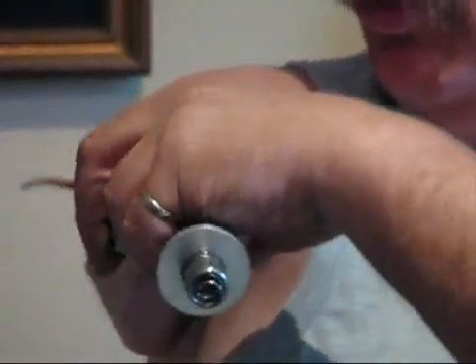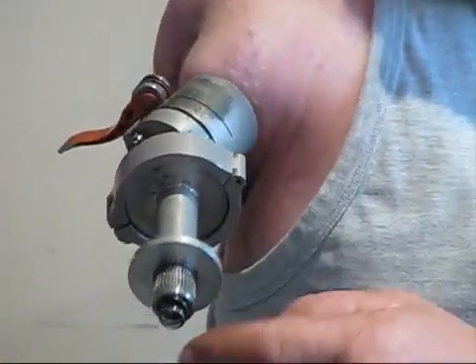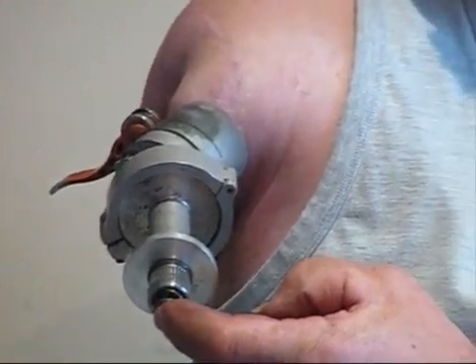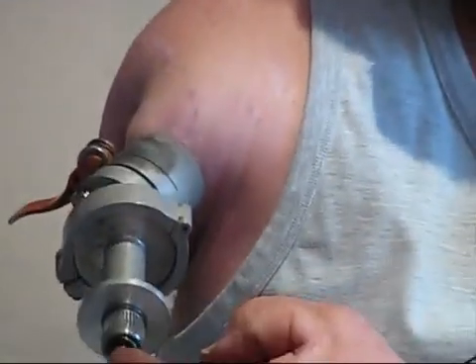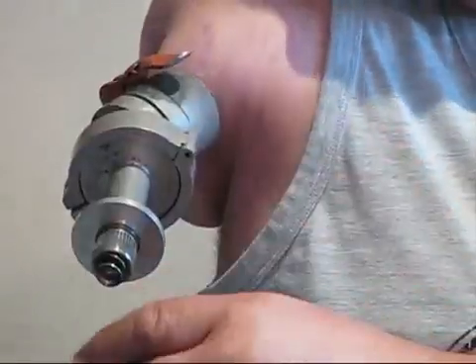It goes on like that, snaps on, you put it to the right angle. There's a ball joint in there to align the arm in the correct direction, and down here is an attachment which is normally out of a prosthetic wrist but in this case it's been used on the upper humerus. So I'm clamping up now the puck and then I am now donning my prosthesis.